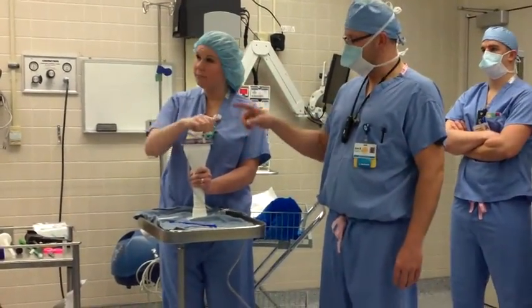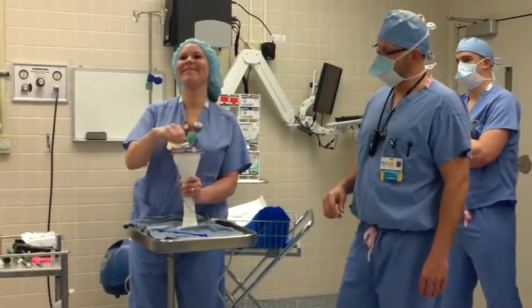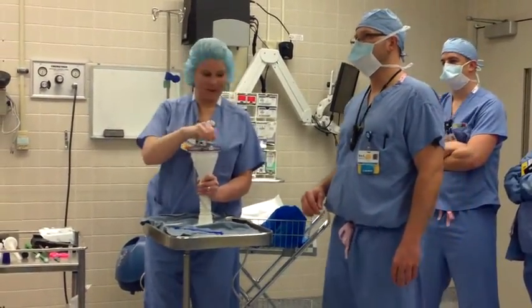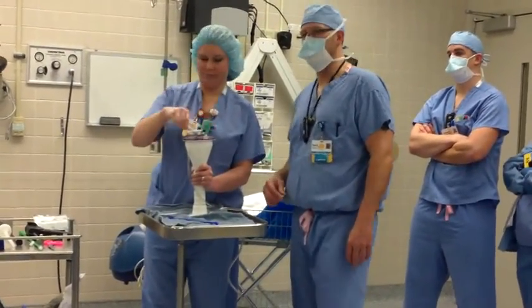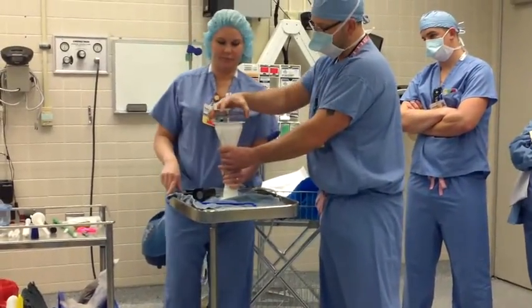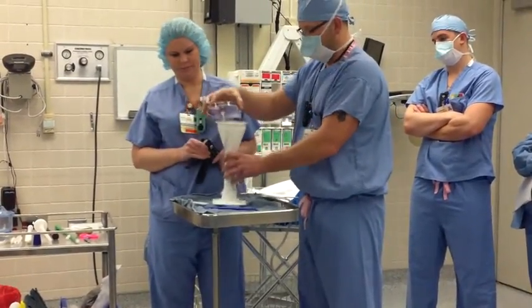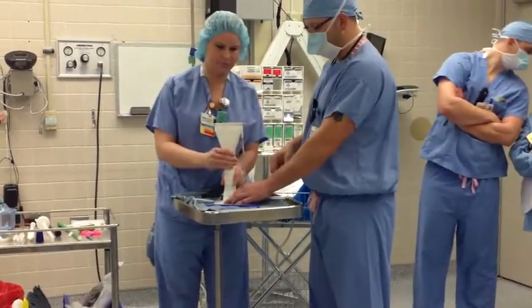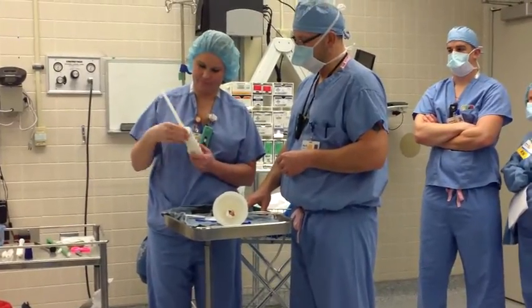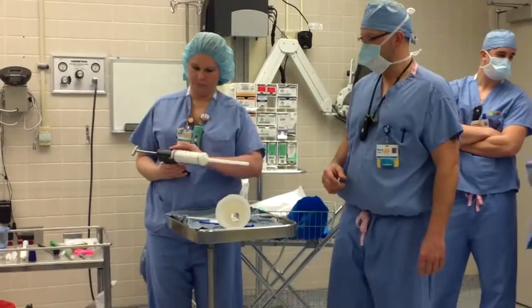Once the cement's mixed, the first thing you do is unpressurize this and drop the cement into the chamber. We're at about a minute. Pull then pop — pull then pop to hear the pressure release. Now I just take this off and start hitting this loose so you can see the cement's now out of that chamber and dropped down into the canal where it's supposed to be. We'll screw that off, take the tab, line the little tab up with the arrow, and thread it around. It will screw on, but when it's not lined up with the arrow it just won't lock in place. Put it on the gun, put the little switch to pressurize — she's ready to go.